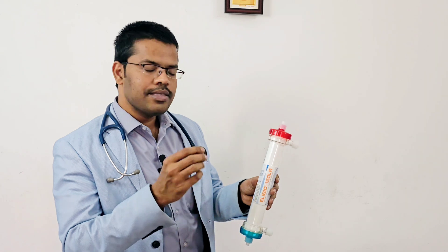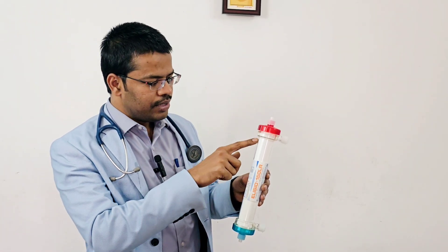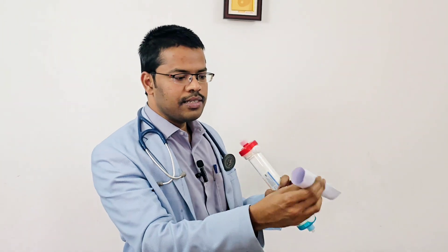The first parameter is the pore size. To demonstrate what a micro capillary looks like, if I take an A4 sheet and rotate it — this is how a micro capillary looks. The blood goes inside the capillary and the dialysate rotates outside around it.